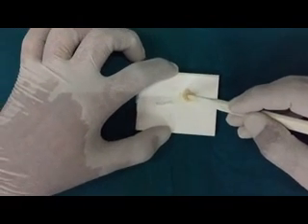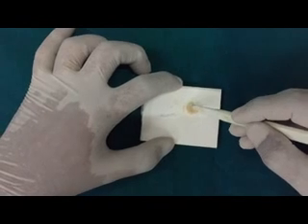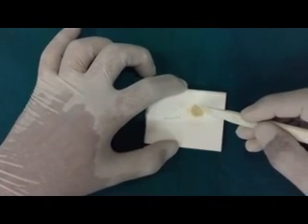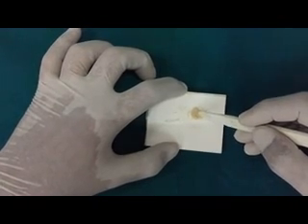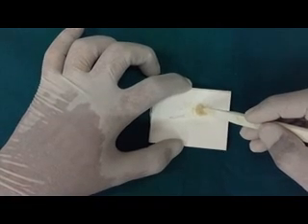For a conventional cement the finishing and polishing is done only after the first 24 hours of the restoration being placed into the cavity. Whereas for resin modified glass ionomers it could be done immediately after the material has set using the light cure unit.